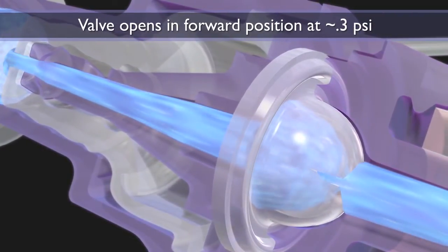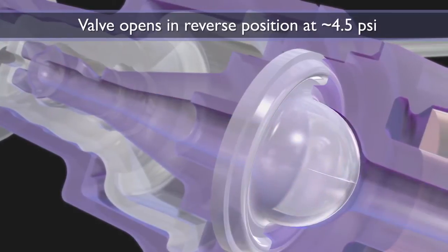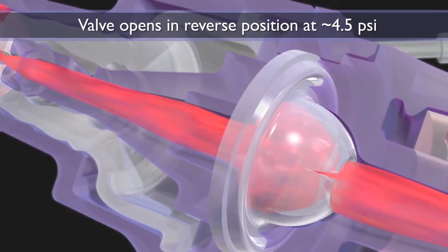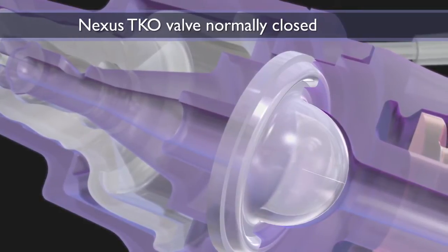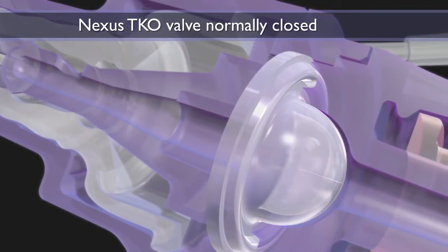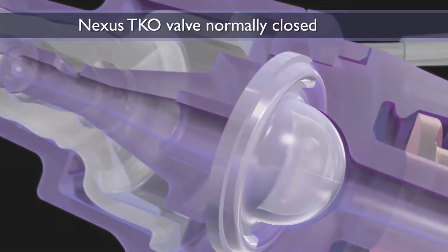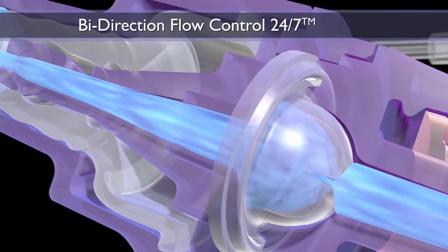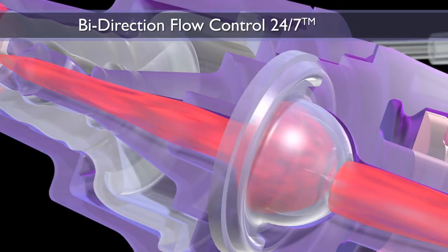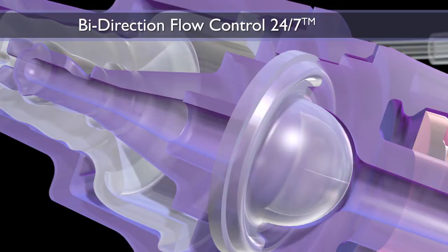However, it remains closed when no IV fluid or corresponding fluid pressure is present. The TKO technology maintains IV catheter patency, while conventional devices are shown to occlude due to uncontrolled blood reflux.